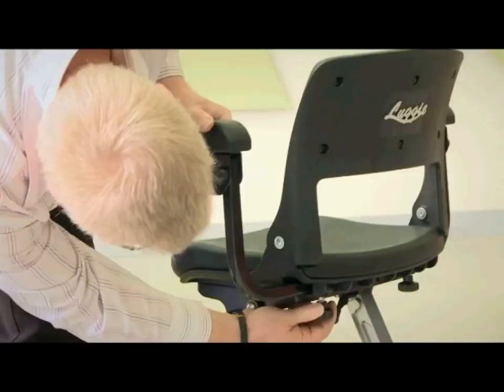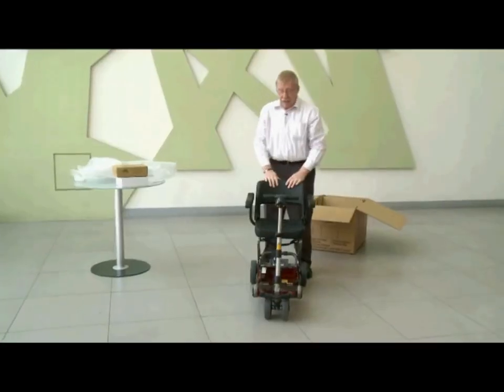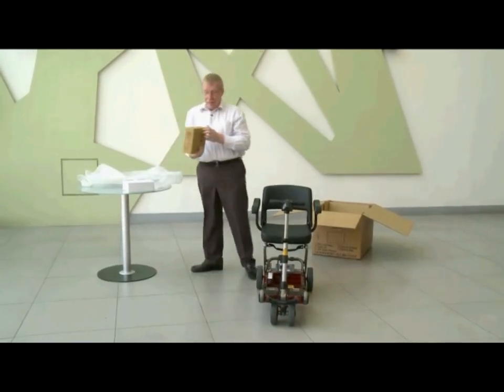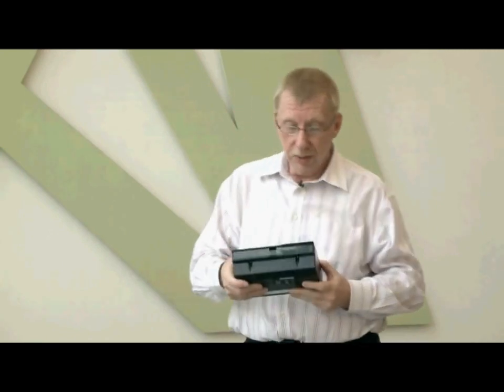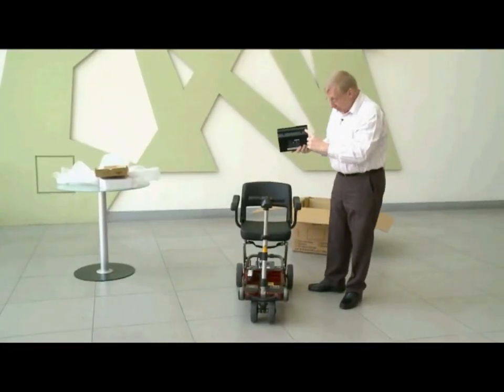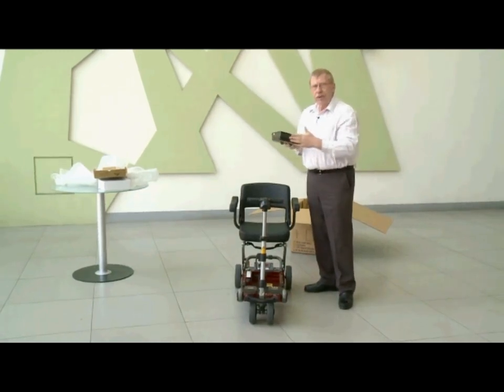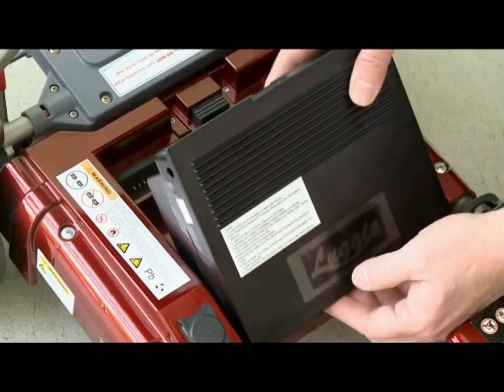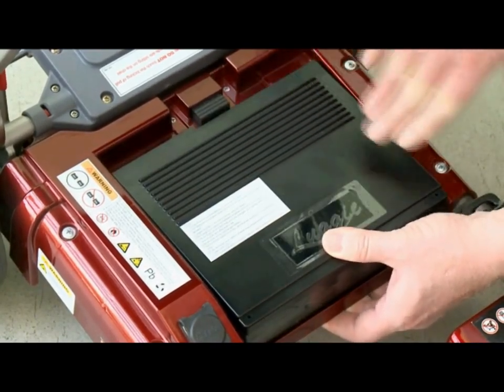This of course is the left one. We only have one more thing to do and that is to give you power. Please note the shape of the battery compartment — these are the contact points for the battery. When you install this, you have to put the flat end facing forward. Simply place the battery in the forward part of the tray and push down until it locks.